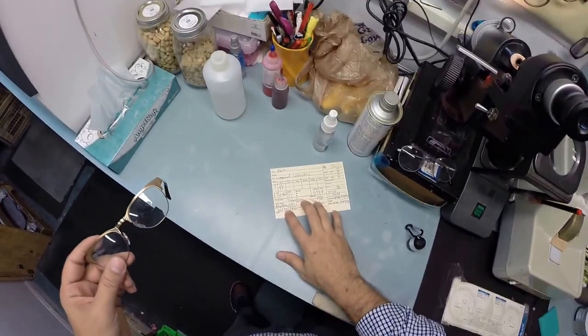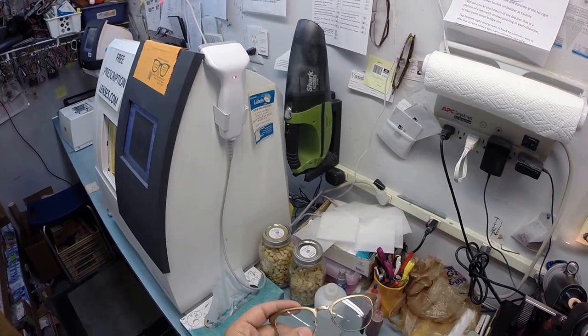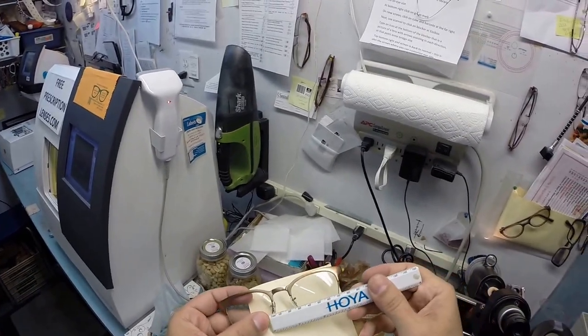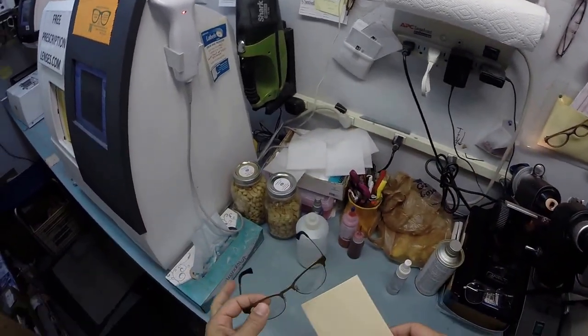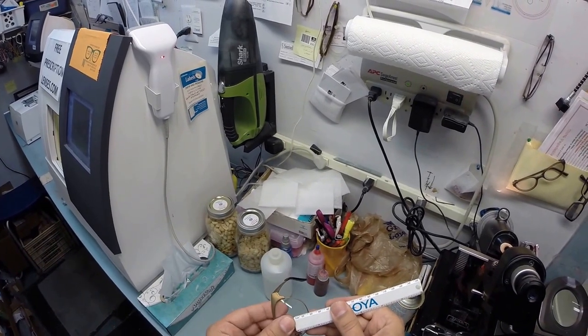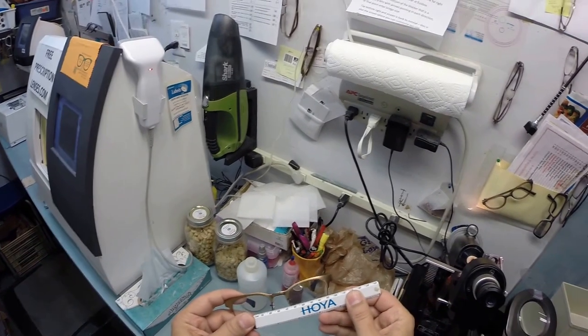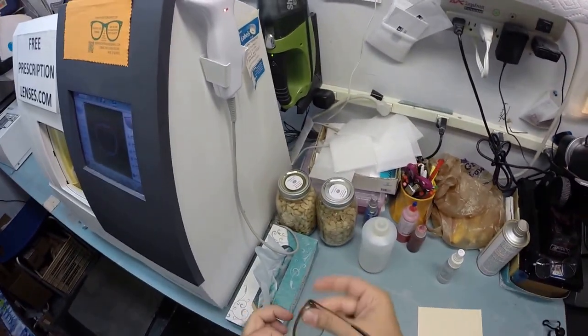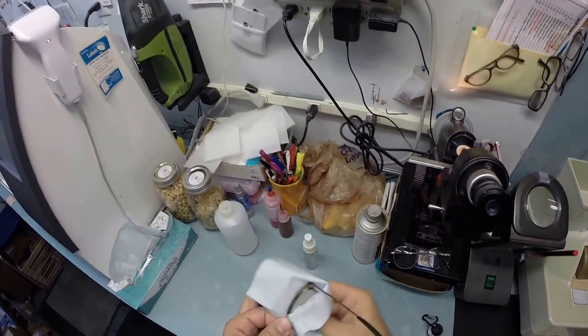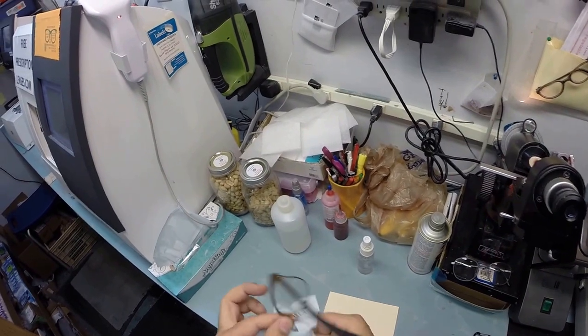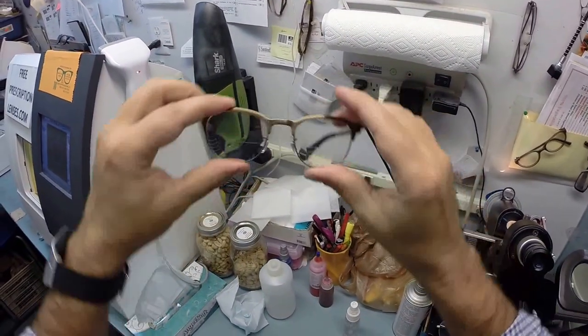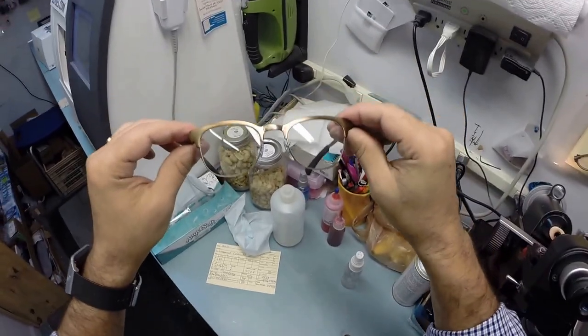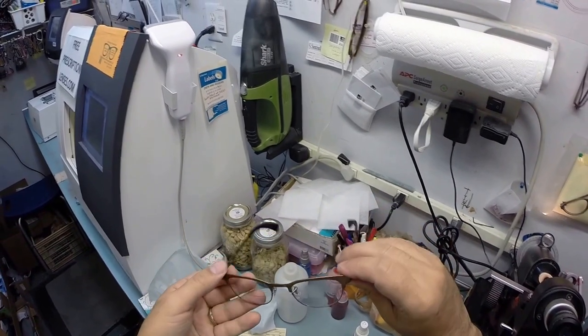I do want to check one other measurement. So that is uniform on both sides. That it is. I can also test by placing this across and measuring that is flat. Now this is what your lenses look like while they are clear. Actually, hang on. I'm getting ahead of myself. Let me back up and clean these off. But when you get these in the mail Mark, there is a very small chance that these could fit too loose or too tight. However, there's an 80% chance that one side is going to sit higher than the other. That is because 80% of people have one ear that is higher than the other. And because of that, 99% of all optical shops will do free adjustments if you ask them. But I'm going to get these in standard alignment first, also known as a three-point stance. The three points are one, two, and the bottom of the frame being three. I set them on the counter and press down. There is no wobble.